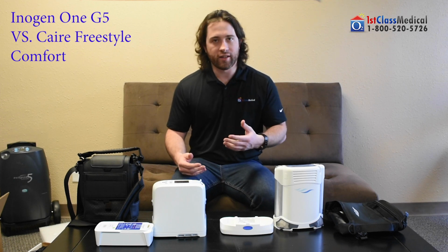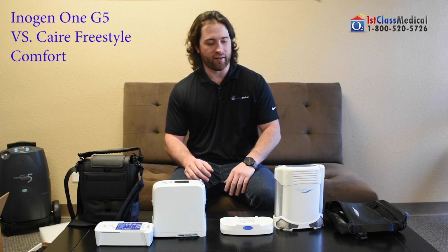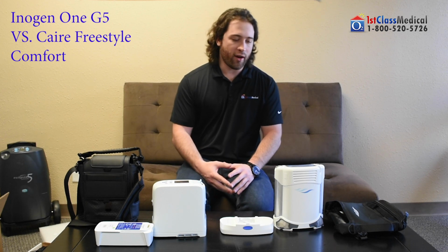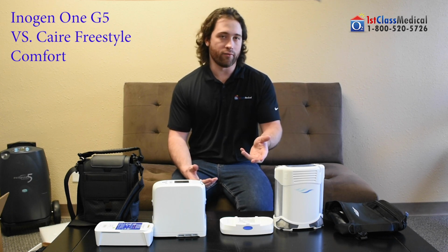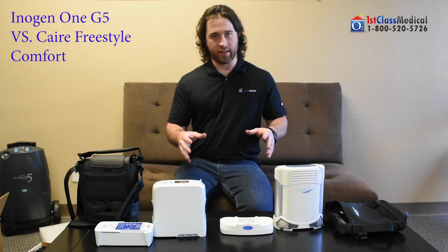And we get it all the time. We get patients calling in asking, which one do I go with? They're both amazing, but now that Inogen has a competitor, it's making it harder for people, and that's why we're making this video. But I do want to let you know right now, there's not one I pick over the other. I just want to tell you the differences and then allow you to decide what you feel is best for your needs. So let's get going. The differences between these two units.